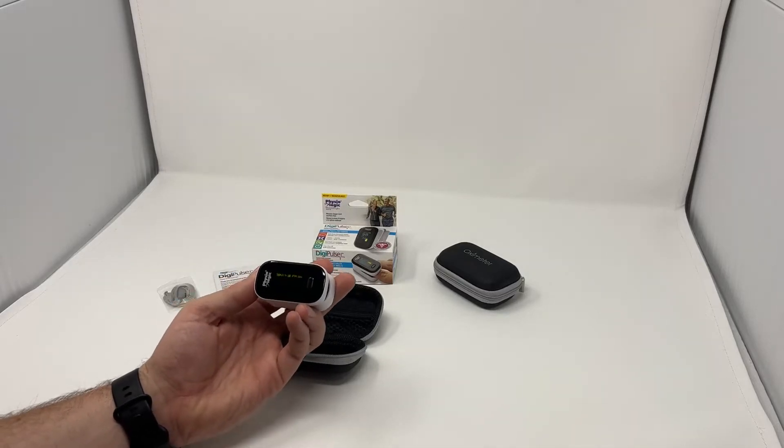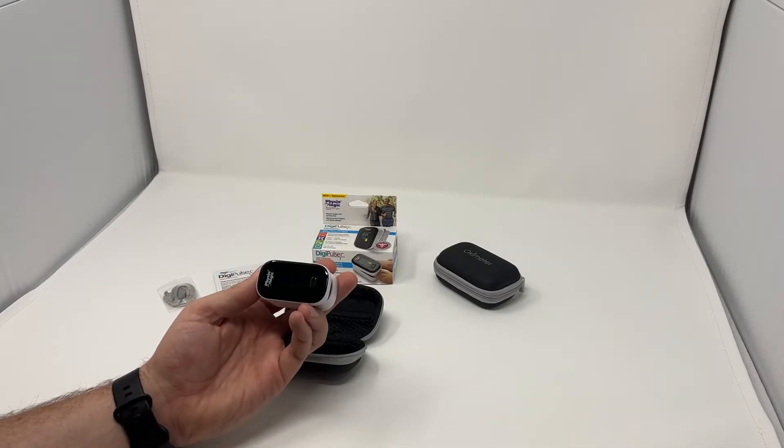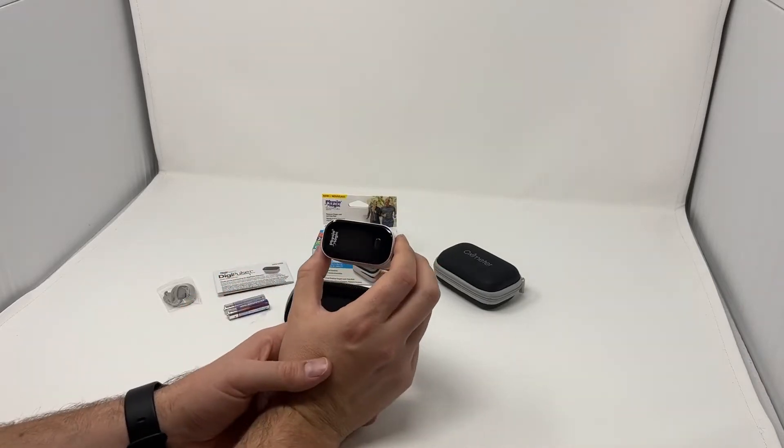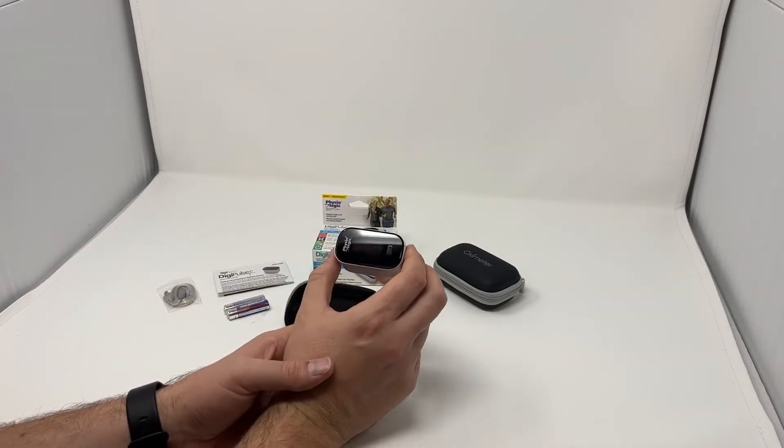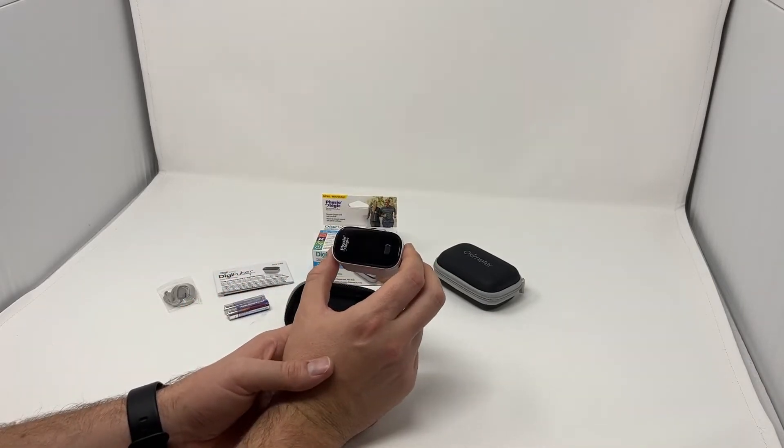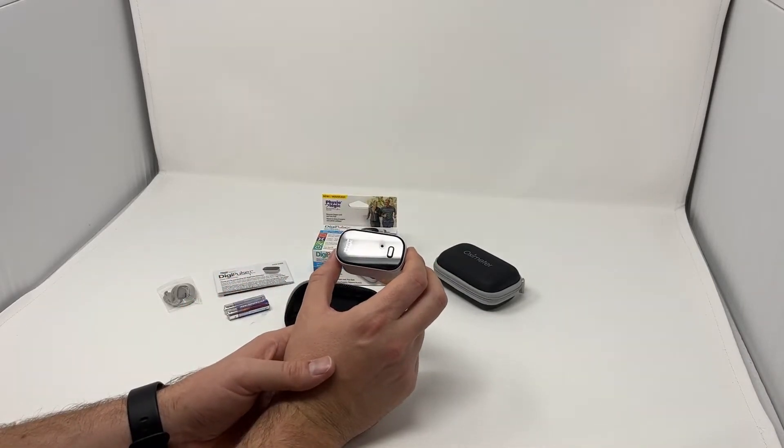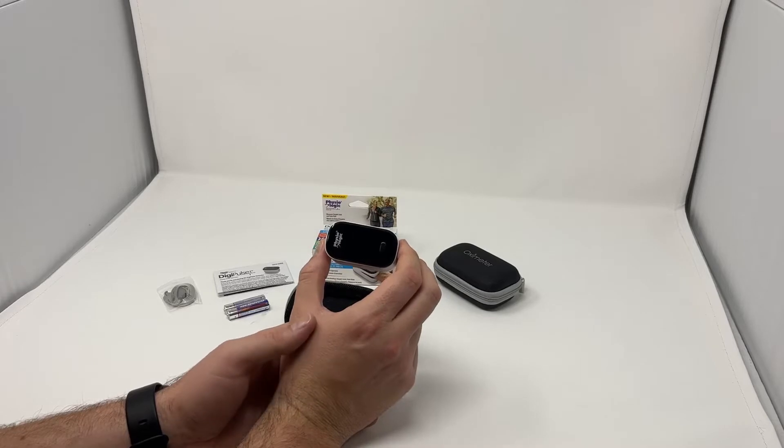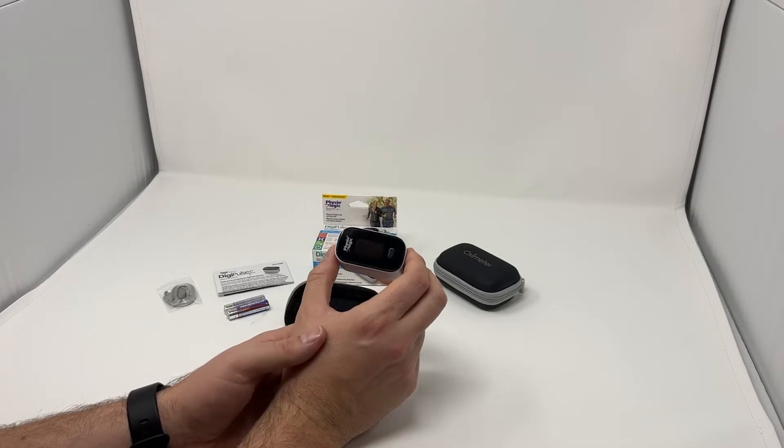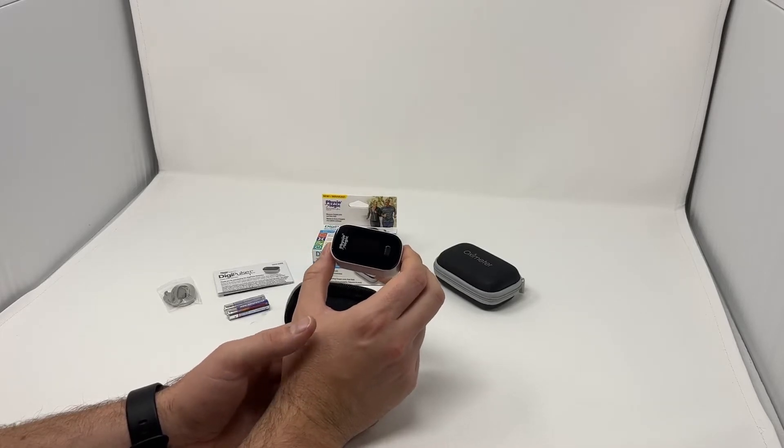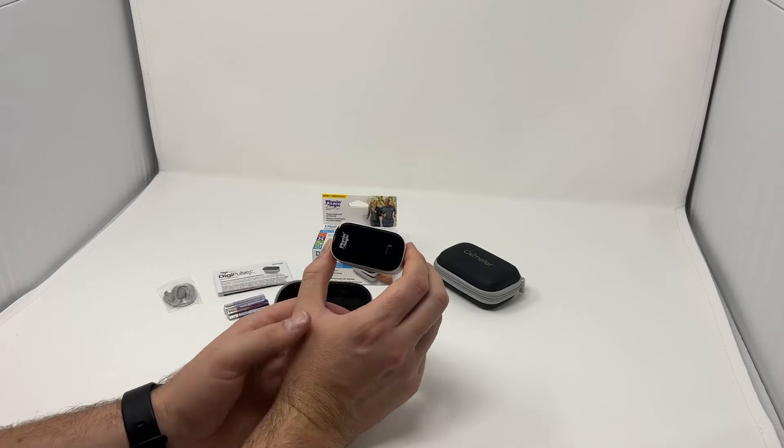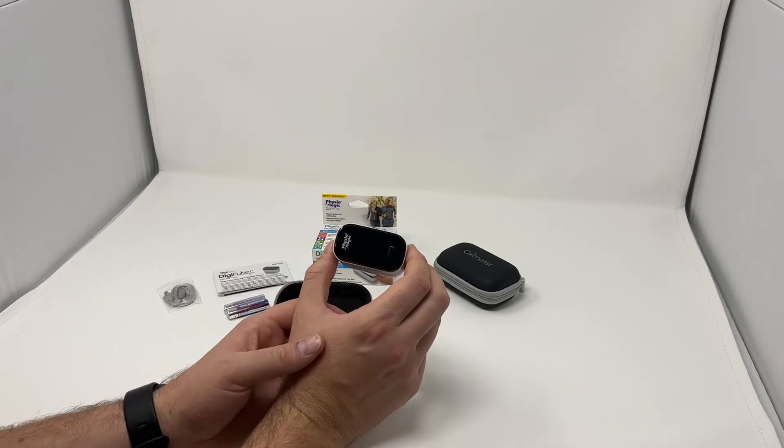This is our brand new finger pulse oximeter. It's designed for a quick check of a patient's pulse oximetry to determine the need for providing oxygen or monitoring whether a patient is adequately oxygenating themselves.